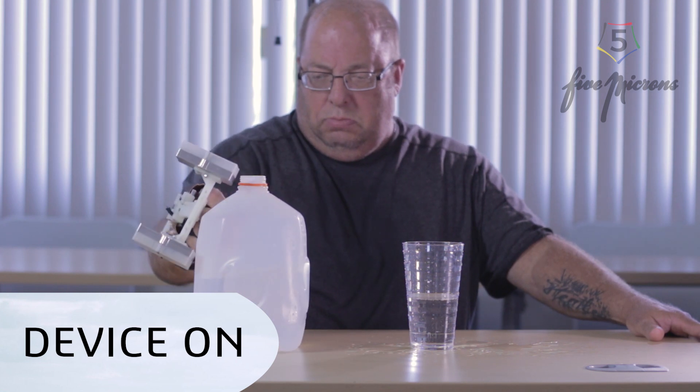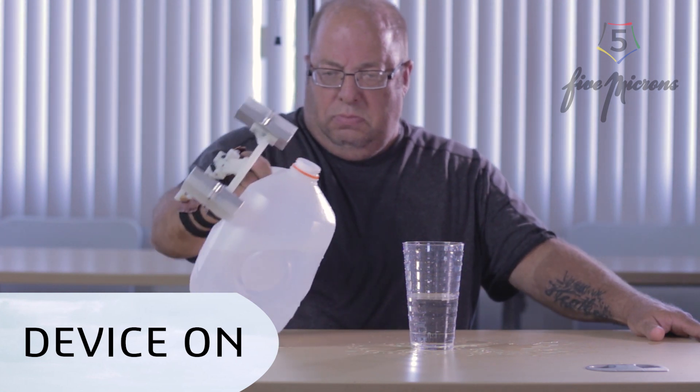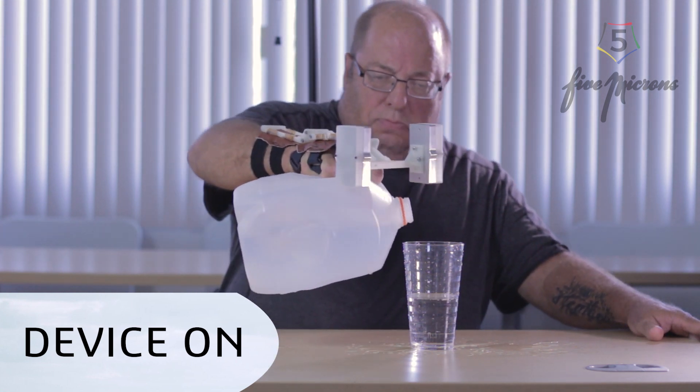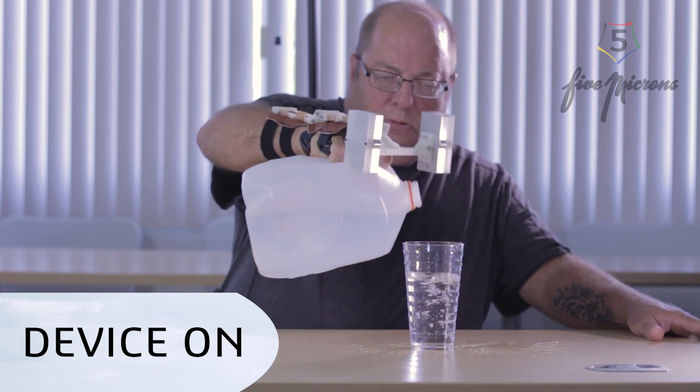With our doctor partnerships around the nation, patients will be able to test and fit for their device during their monthly checkups. This is just amazing. I could never do that. It would be spilling everywhere if I had to do it like that.